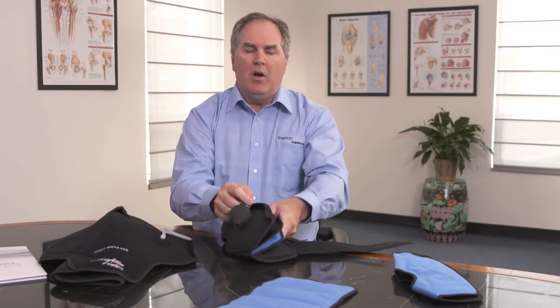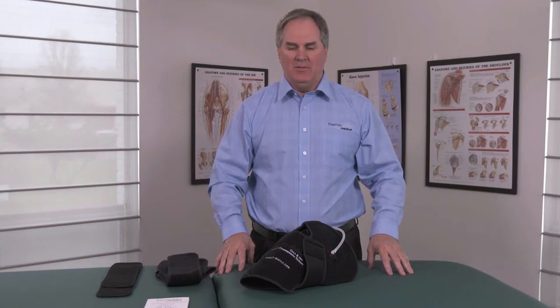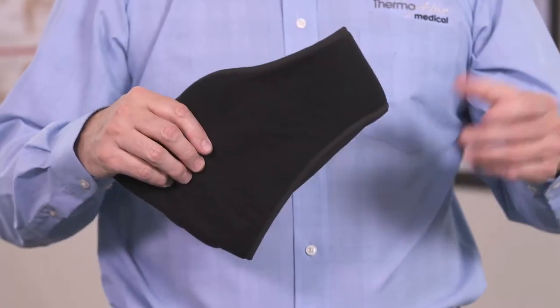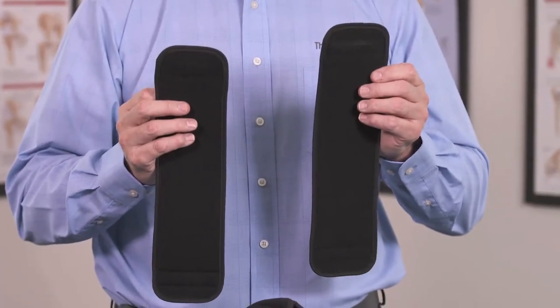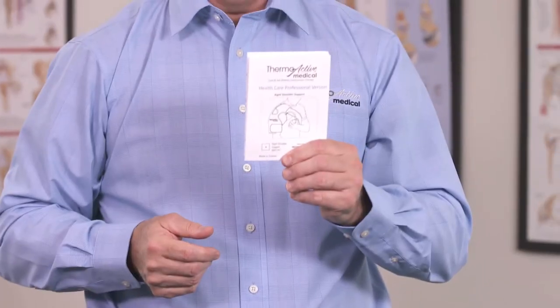We do have a full line of hot and cold compression L-coded products for our medical professionals. I'm going to discuss the components of our Thermoactive Medical shoulder system, L-code L3670. You will receive our support as shown here, which does come with our compressor. You also receive our body strap which crosses across the back and attaches to the support in the front. To accommodate our larger patients you will receive two extension straps as well as our fitting instructions.